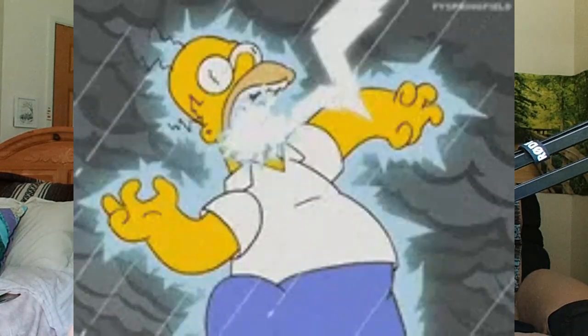Hello everyone and welcome back to a Monday dedicated to caregivers. Today we're going to talk about cleaning a power wheelchair or manual wheelchair. I have the whole recipe here and it's a little dark outside, so if lightning hits me you'll know what happened. Let's get this done before I get it.